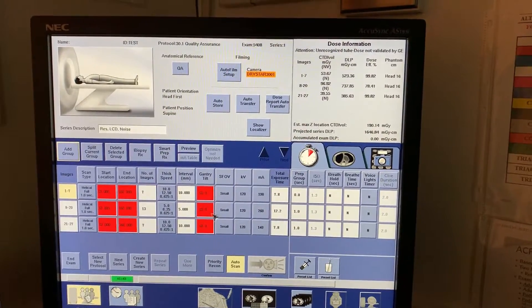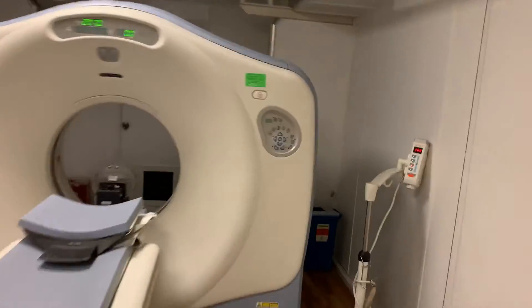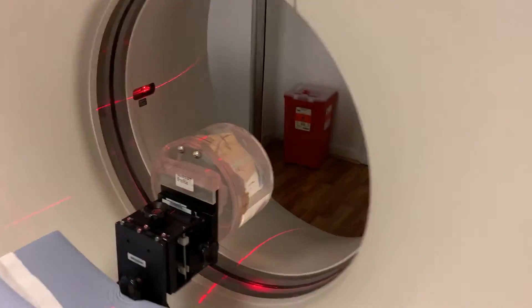If you see your red squares there, that means you need to landmark. So let's go inside the camera. We'll get our laser light button, and that will power on our lasers.